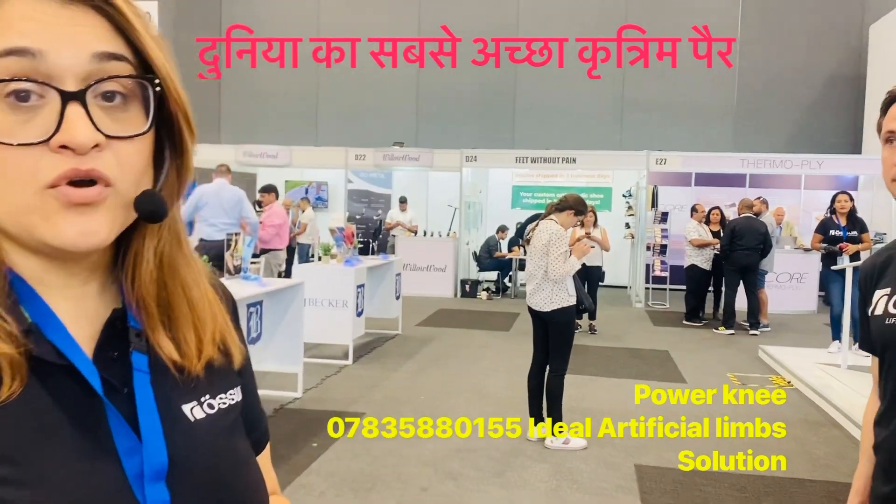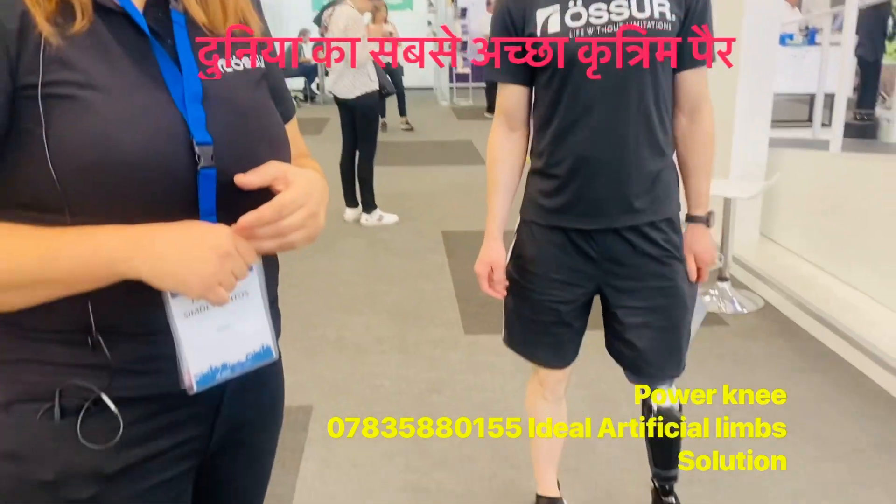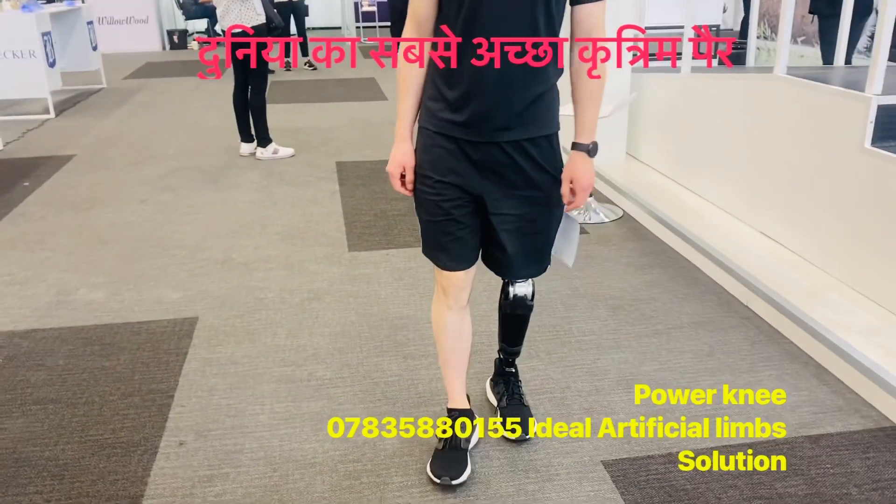To stand up, of course, this is very helpful especially. Can you show by walking? Yeah.